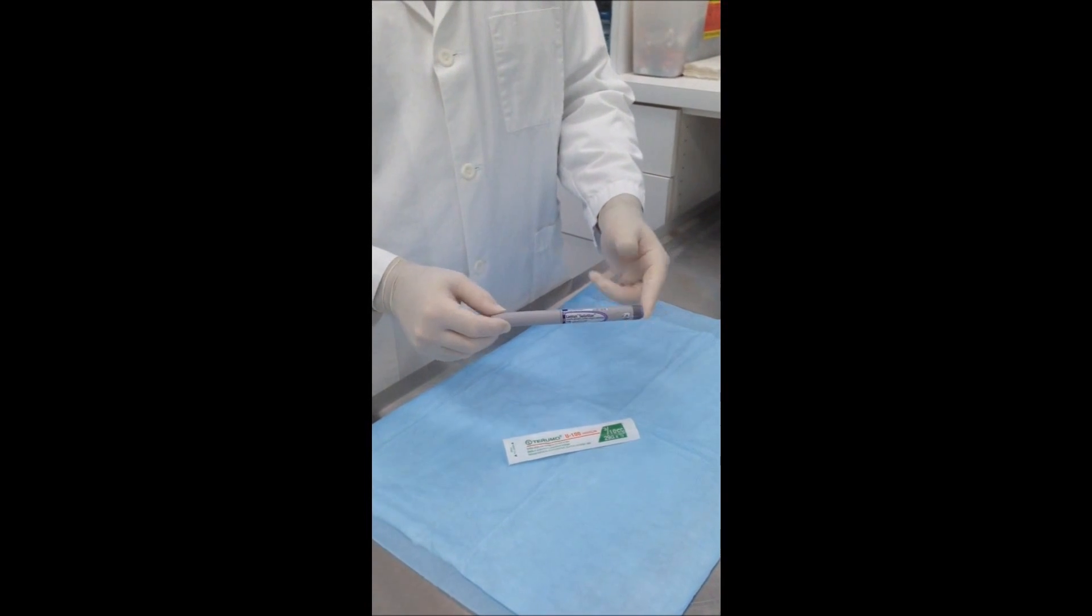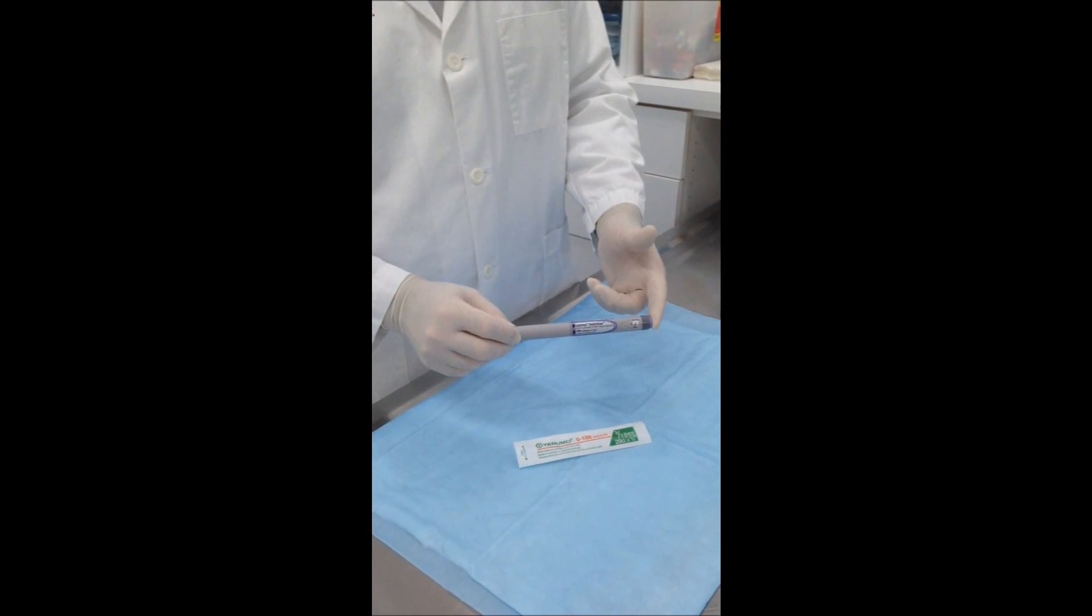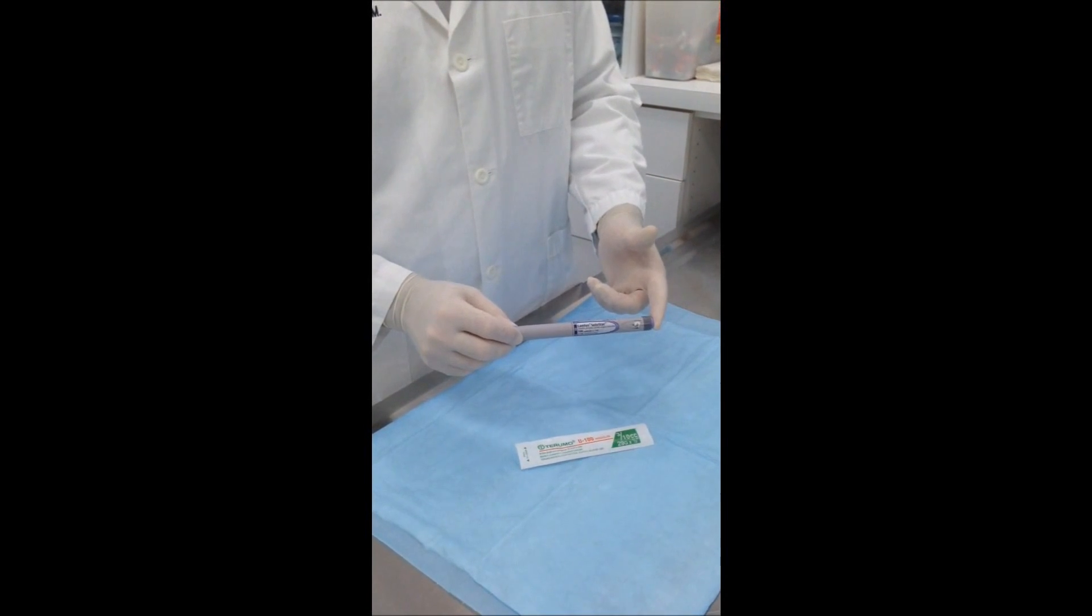it might be economical for them to consider using a SoloSTAR insulin pen and drawing the insulin out of the pen as a dispensing agent rather than using the larger size vials.